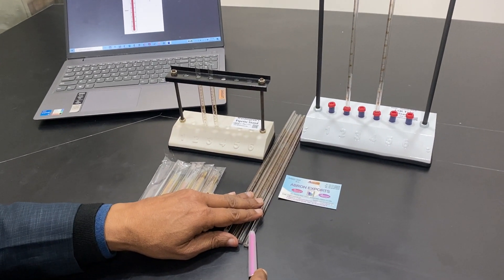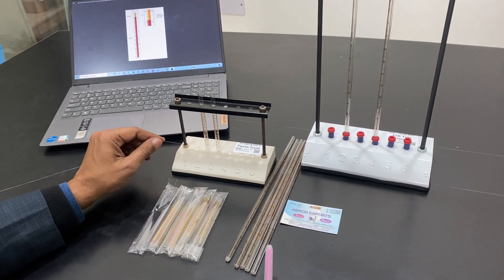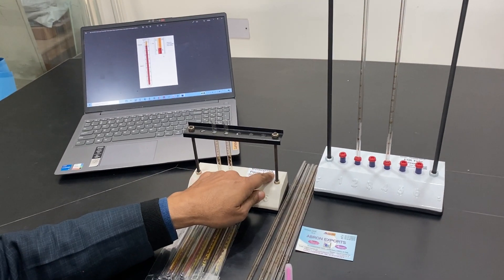We have got spare tubes also. This is borosilicate glass. We have got PVC also. This one is a Westergren.